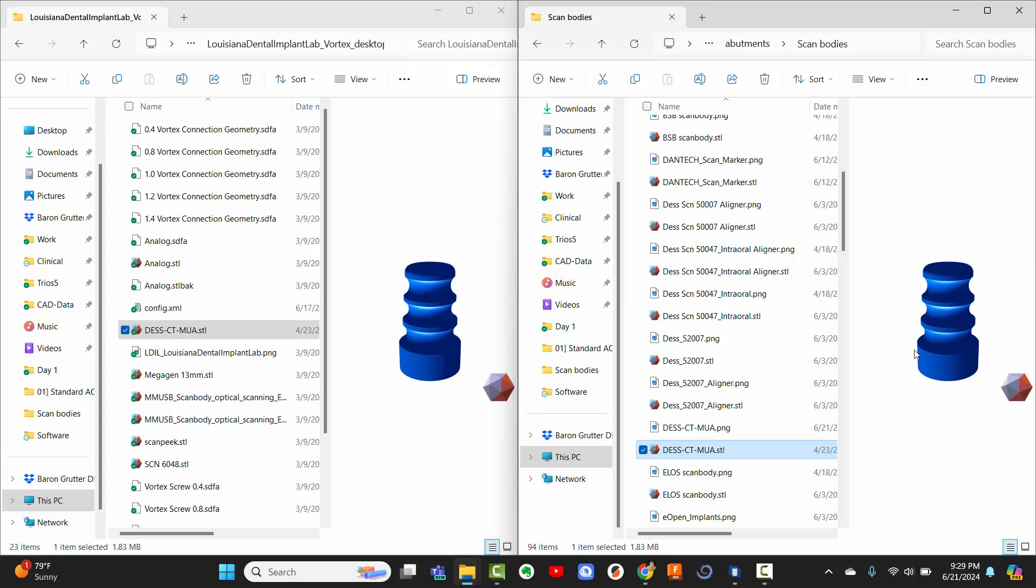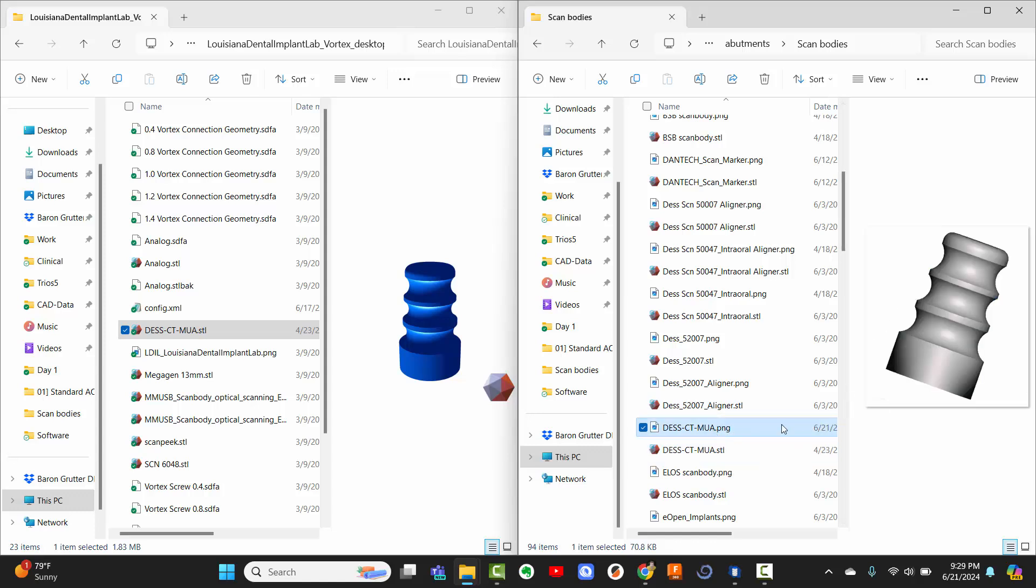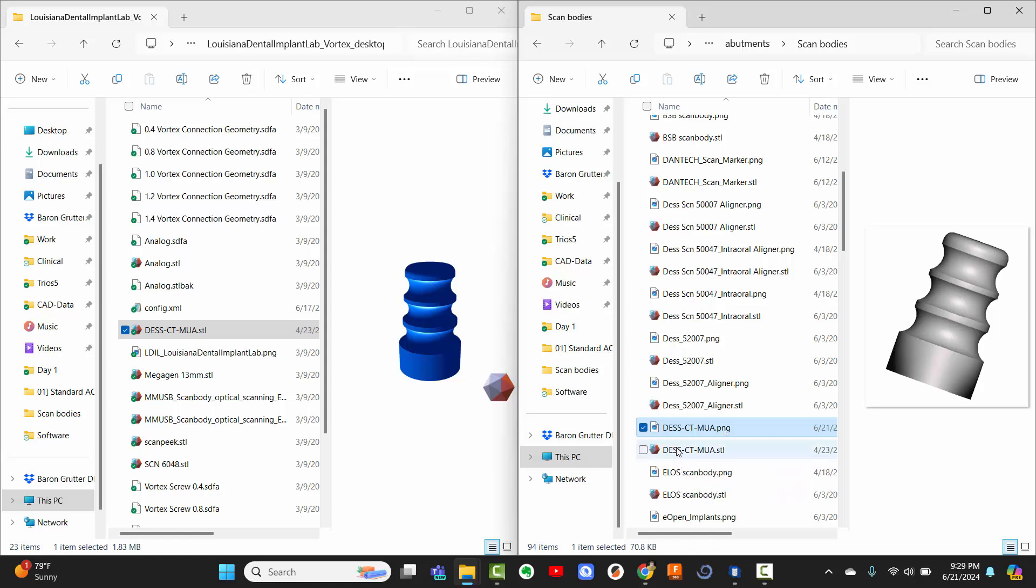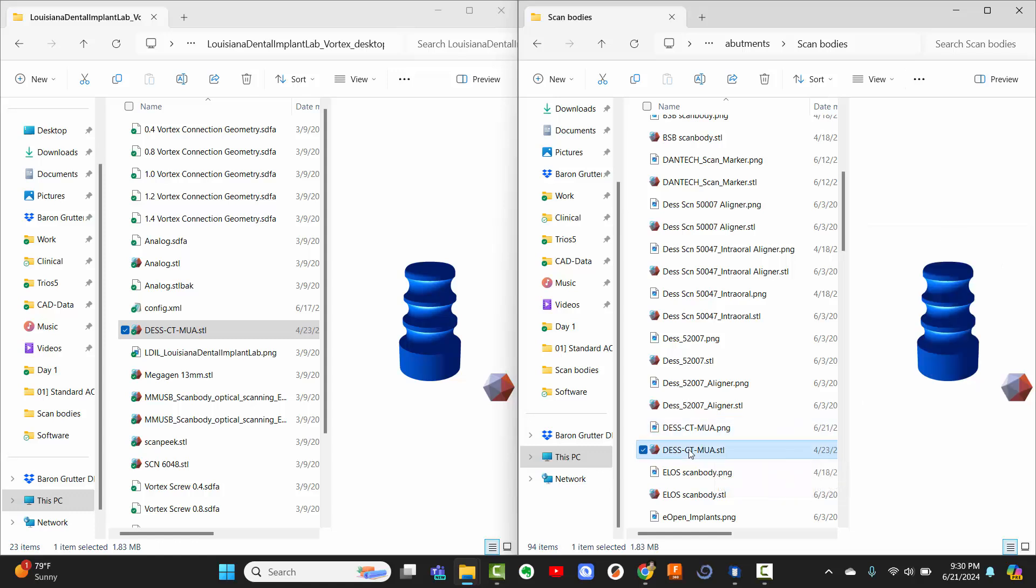Now, if you want there to be a little thumbnail that matches it, then you'd need to take a screenshot of it and make a PNG. That's literally what I did, I opened it up in ExoCAD and took a screenshot of it and you just, you know, rename that screenshot to the exact same name, just obviously a .png instead of a .stl. I'm not going to show you that because that's pretty darn simple, hopefully, to make a screenshot, and you don't actually have to have it. But it'll just show the name if you don't have a screenshot.